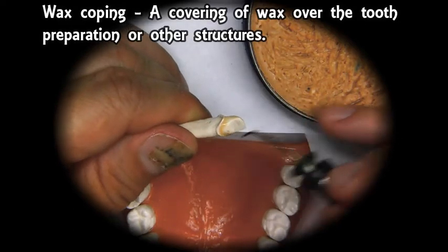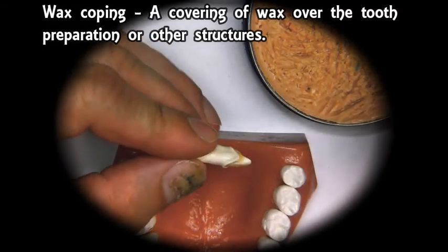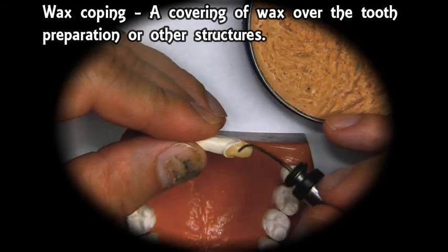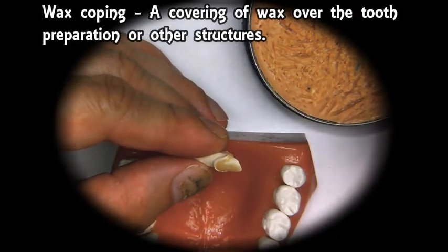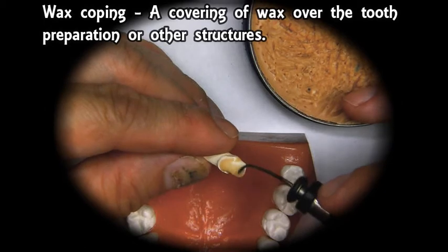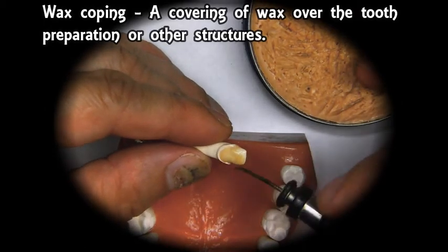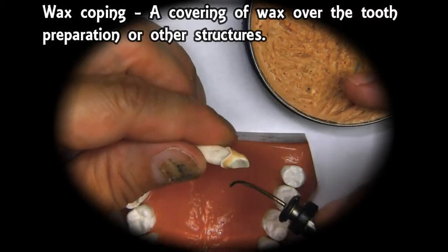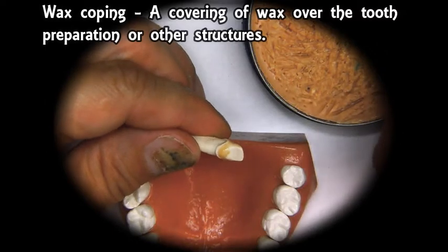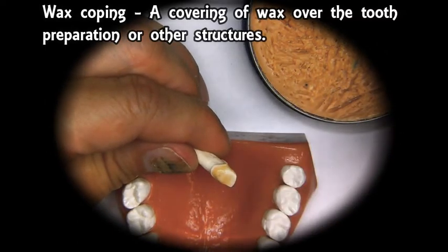If we go over the margins, that will create an undercut. If we tried to take the wax up off, it would break. Although in this case, we're not going to try to take these wax ups off, since our main goal is to learn the anatomy of the teeth.